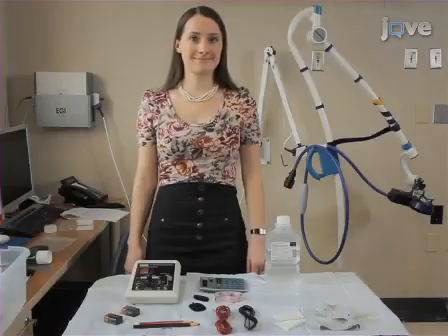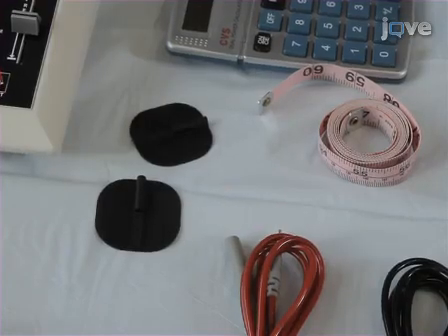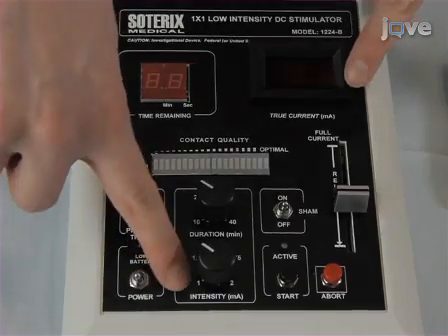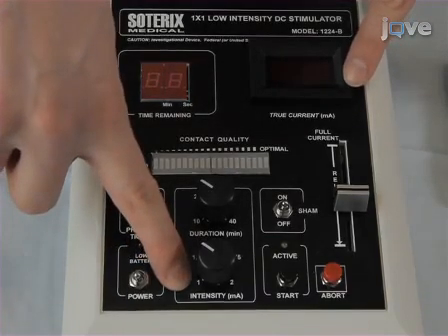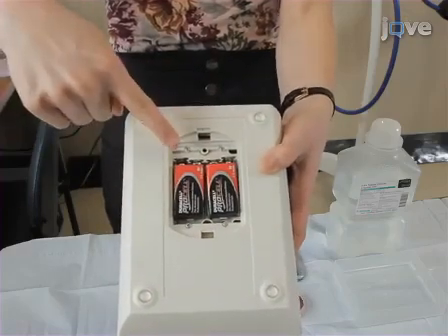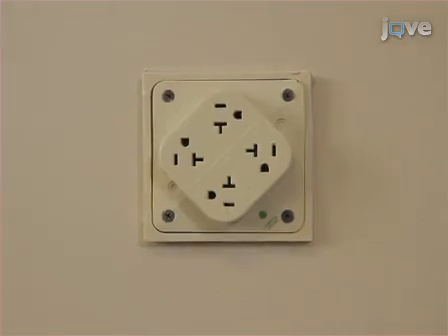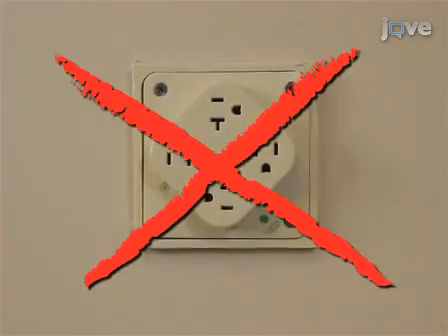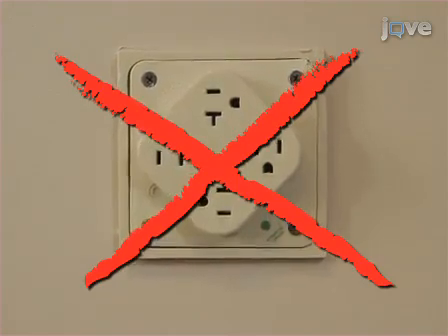Before beginning this protocol, assure that all needed materials are available. TDCS devices should be battery-driven and constant current controlled with a maximum output of a few milliamps. In some devices, the batteries can be chargeable. Using electrical outlets to power the device is not appropriate, as malfunctioning devices might deliver large intensities of electrical current without warning.